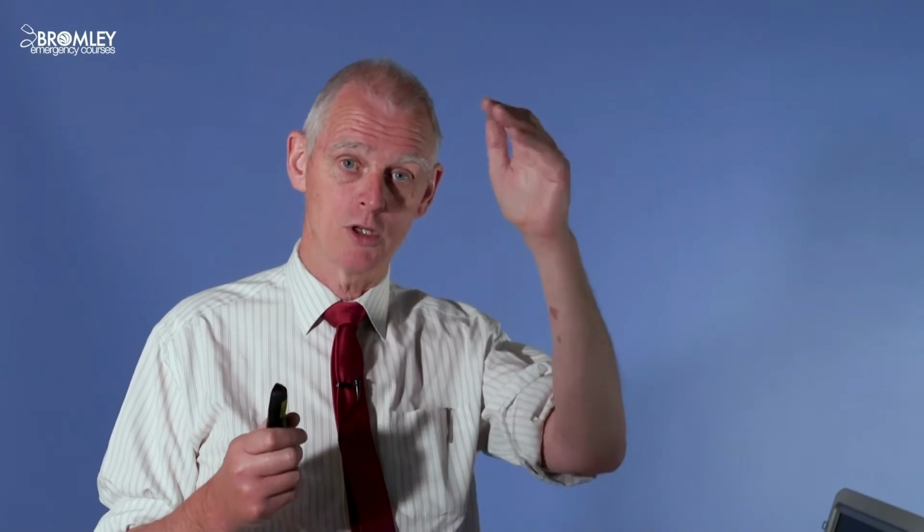So that's time gain compensation. To be honest, we're not going to use it a lot on the course. It's not going to matter to us very much. But if we were, for example, looking at the liver, if you're a radiologist and you're looking for fine detail, you're looking for a metastasis or something, you're going to want the liver to look uniform all the way down from the anterior to the posterior parts of the image. So that's TGC.